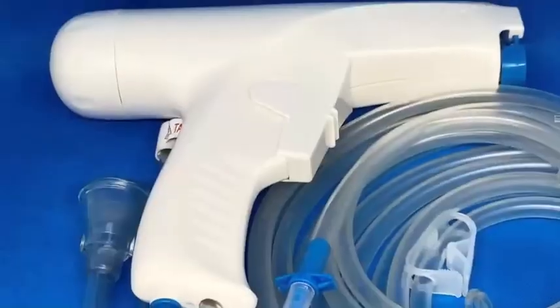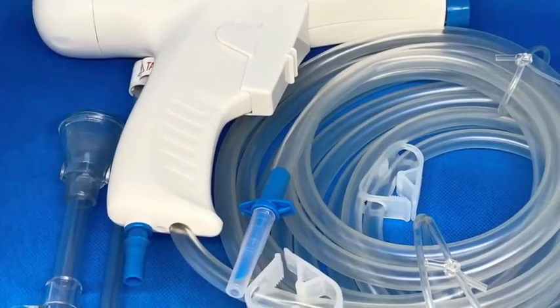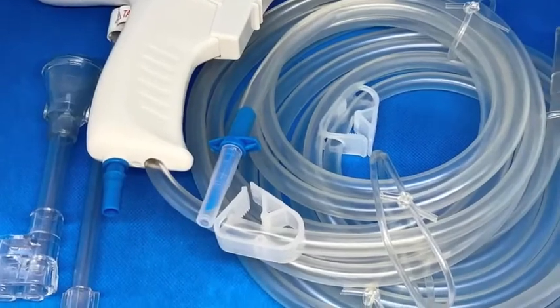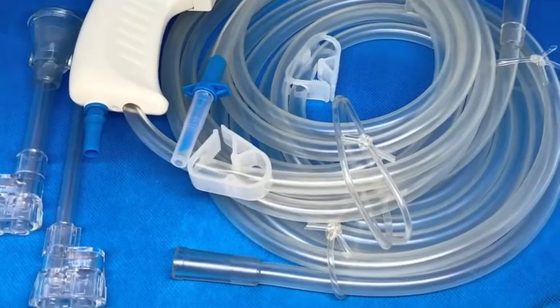The system works with pulse jets of irrigated saline which penetrate into the cancellous bone, removing both blood and debris, thus supplying an improved bone to cement interface and reducing the risk of fat embolism.